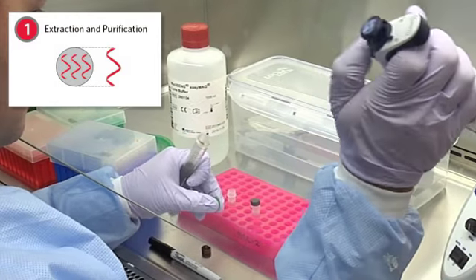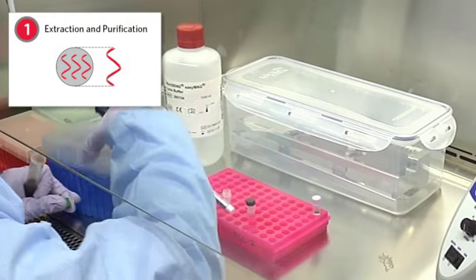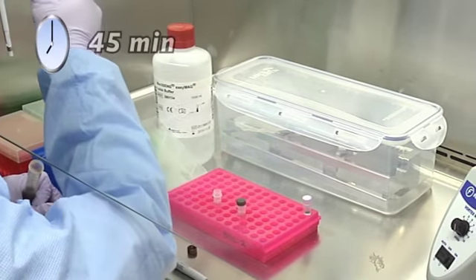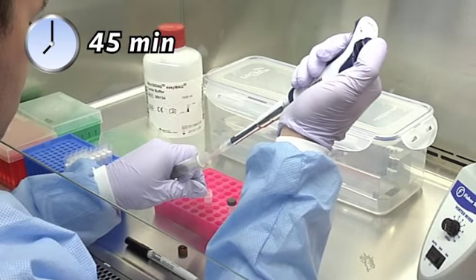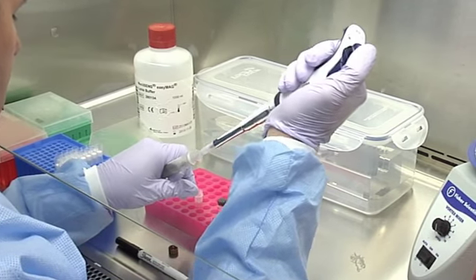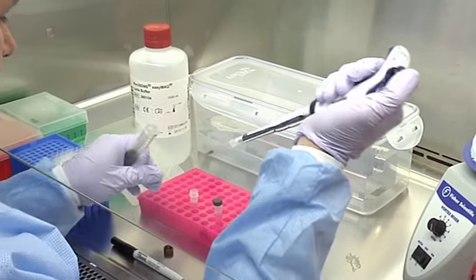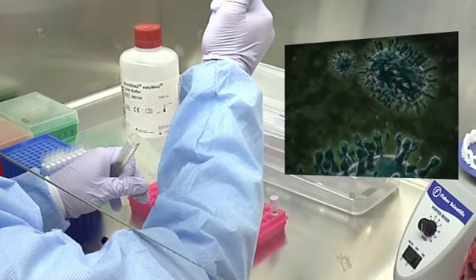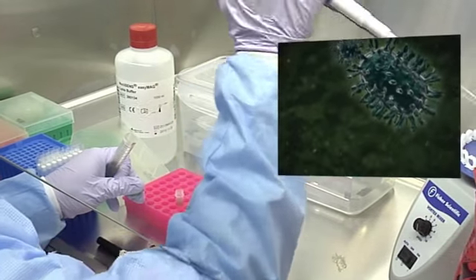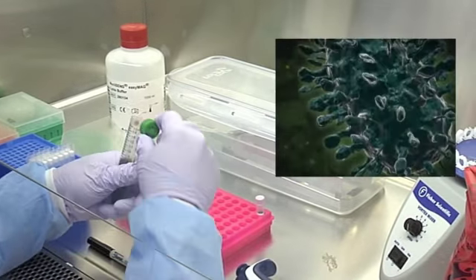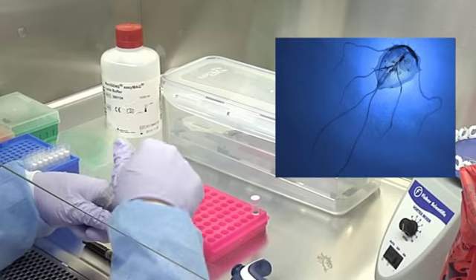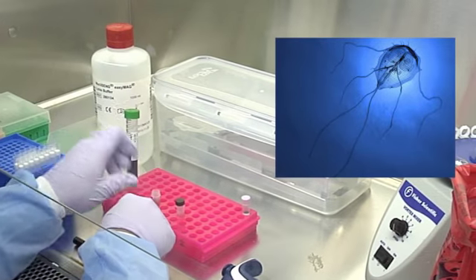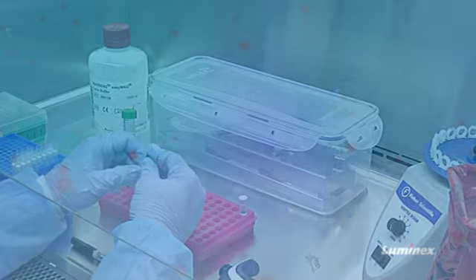GPP requires pretreatment of the sample before the extraction. The pretreatment is used to ensure maximum nucleic acid extraction efficacy by improving pathogen lysis. The pretreatment step is particularly important for the parasitic targets.